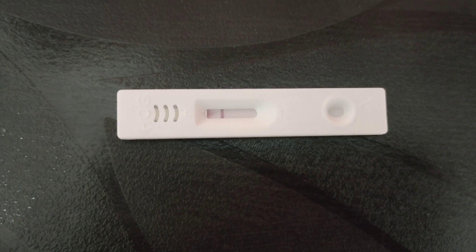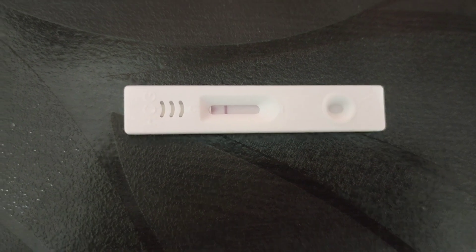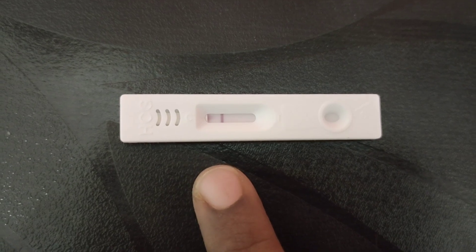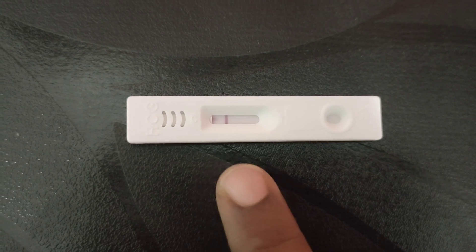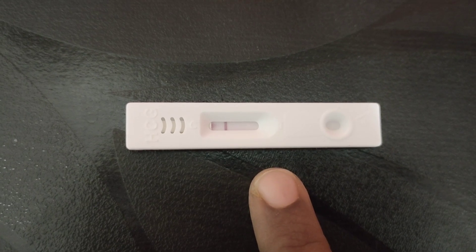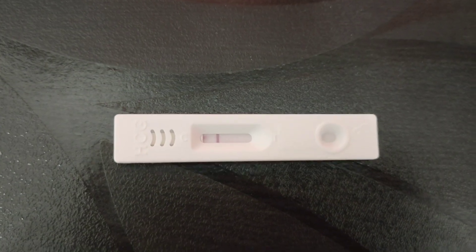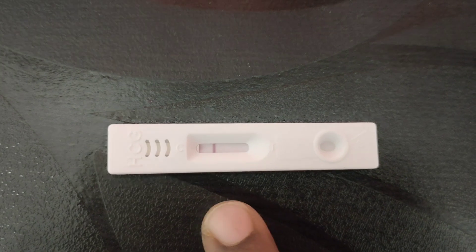So now we have got the final result. As I told you earlier, this is the negative test, and that's the reason you are getting a single red line along the controlled region. If it was positive, you would see two lines — one near the controlled region and one near the test region. So this person is non-pregnant, that's the reason you are getting a single line.